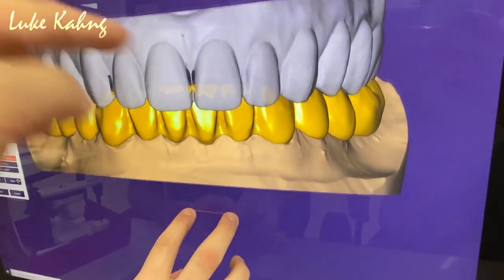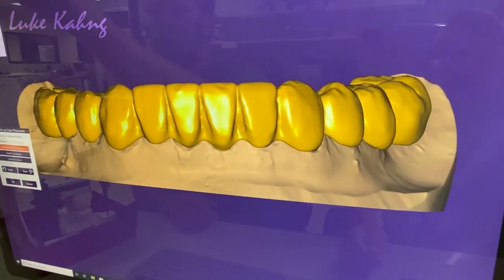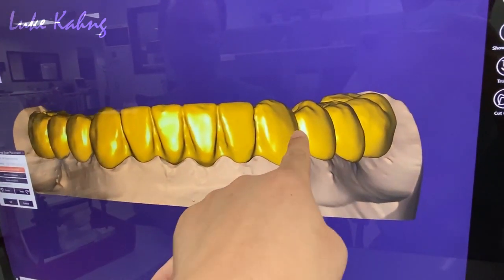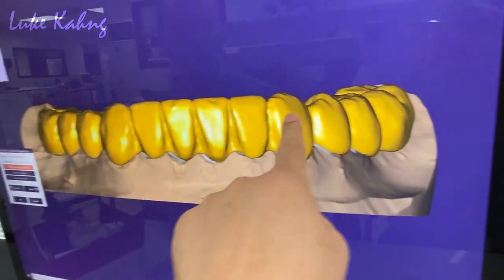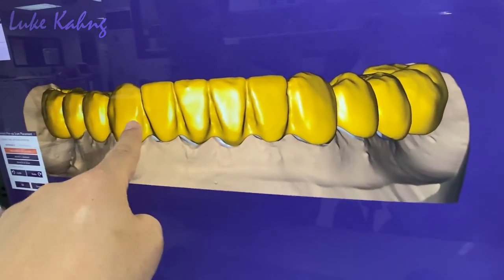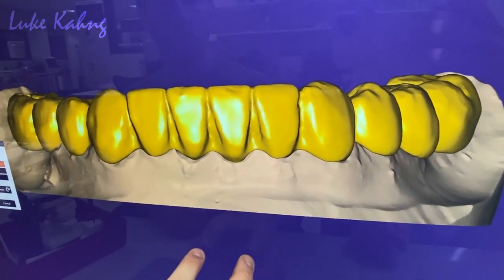So we open this and get a good six-unit result, which is great. Trying to get the better curve of Spee and Wilson, but here there is a little bit of an issue with the bite. The height of contour looks good — all right, that was nice.